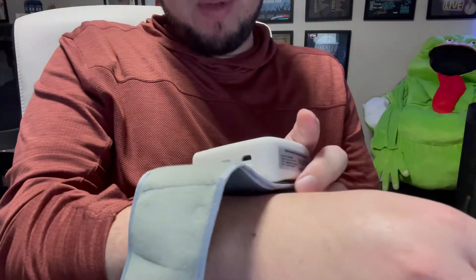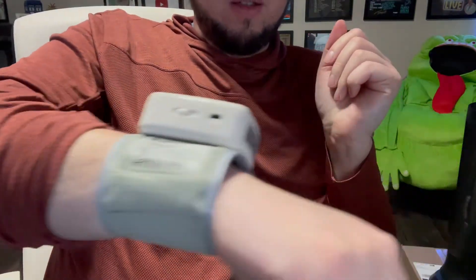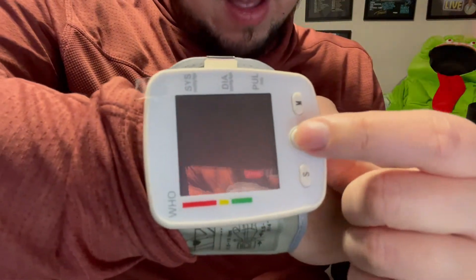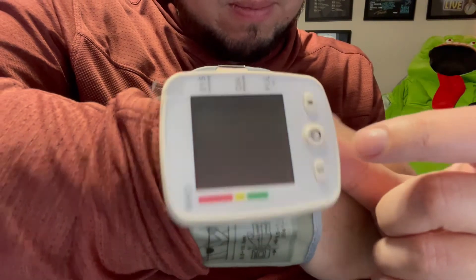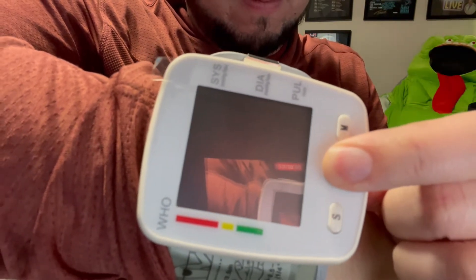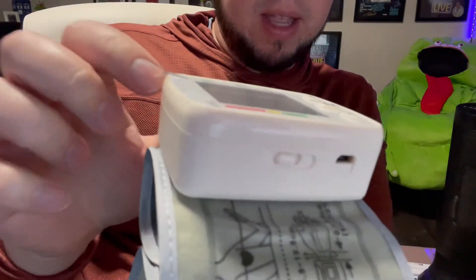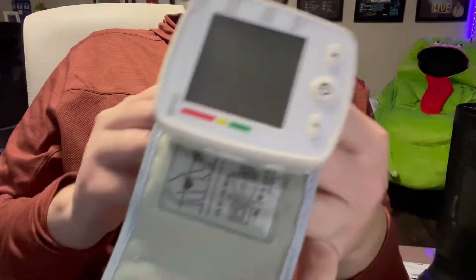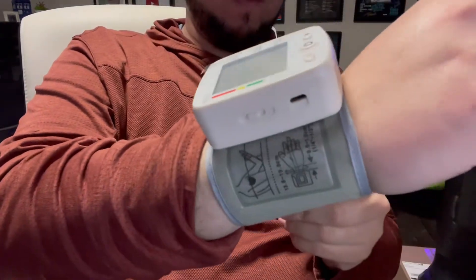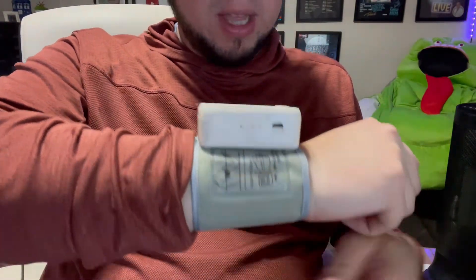I've been relaxing — I'm going to put it on my wrist. As you can see, it looks pretty baller. Let's see if the power button works right away without charging. Okay, it appears I got mad for nothing, because there is a power button here but then there's also an on/off switch — so I'm going to put this back on and see if we can get it to work. Don't ask me why there's both power and on/off, because that should be the same thing.